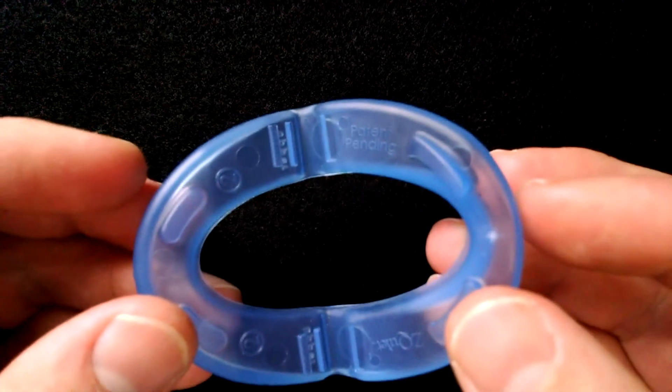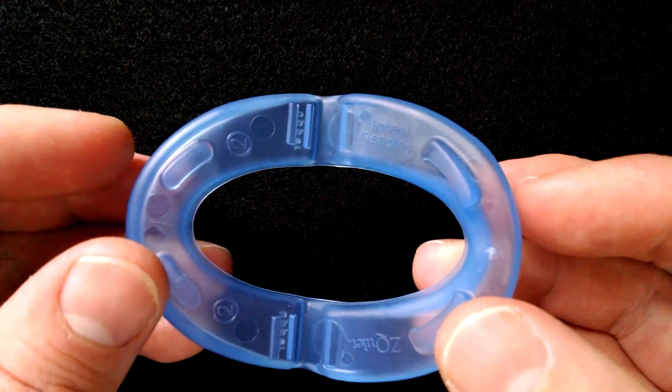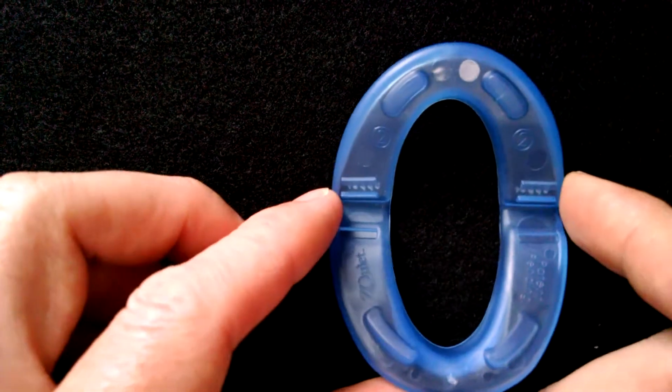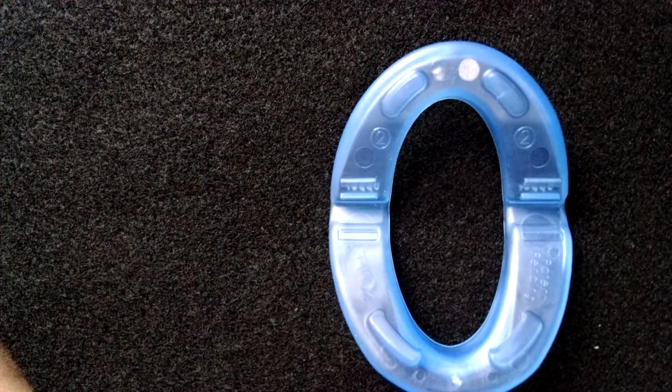The Z-Quiet runs about $80 plus $10 shipping, so about $90 you can get a Z-Quiet. Let's put them side by side once again.